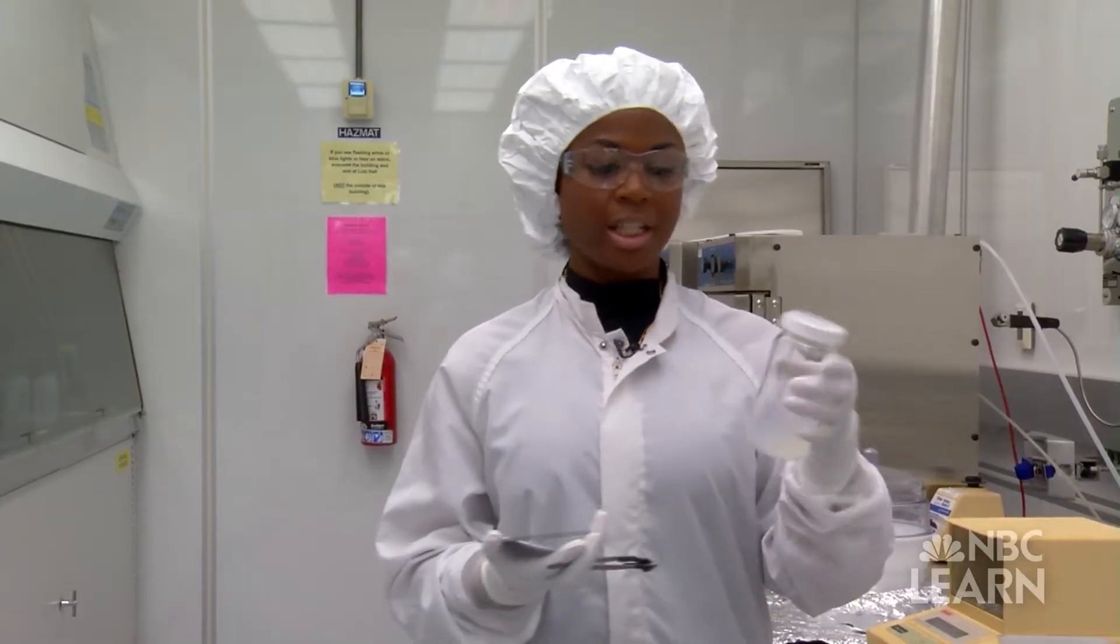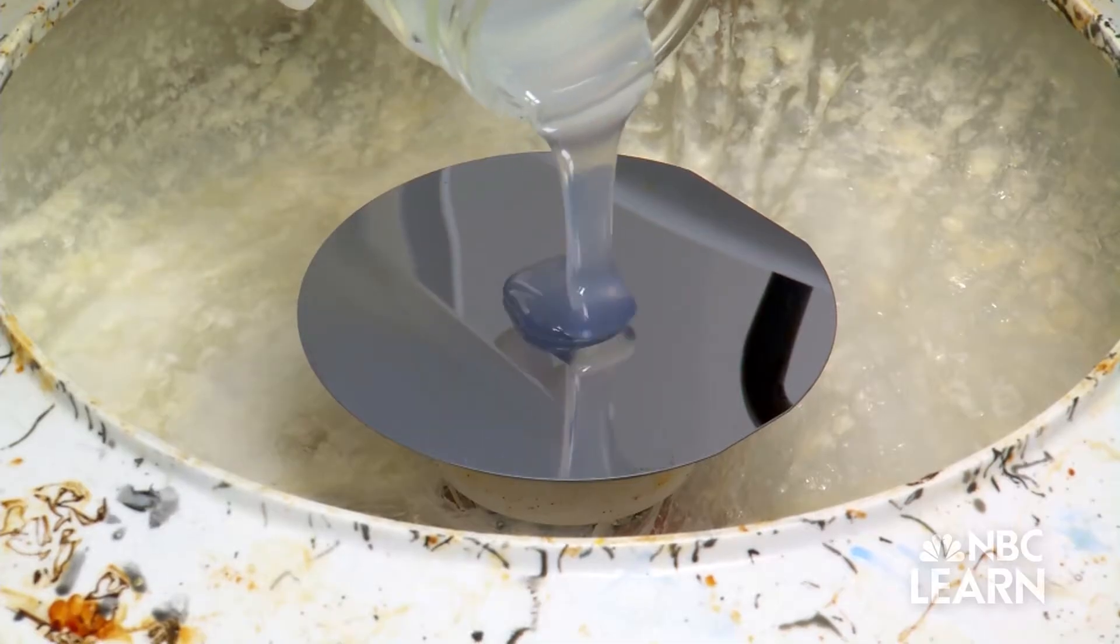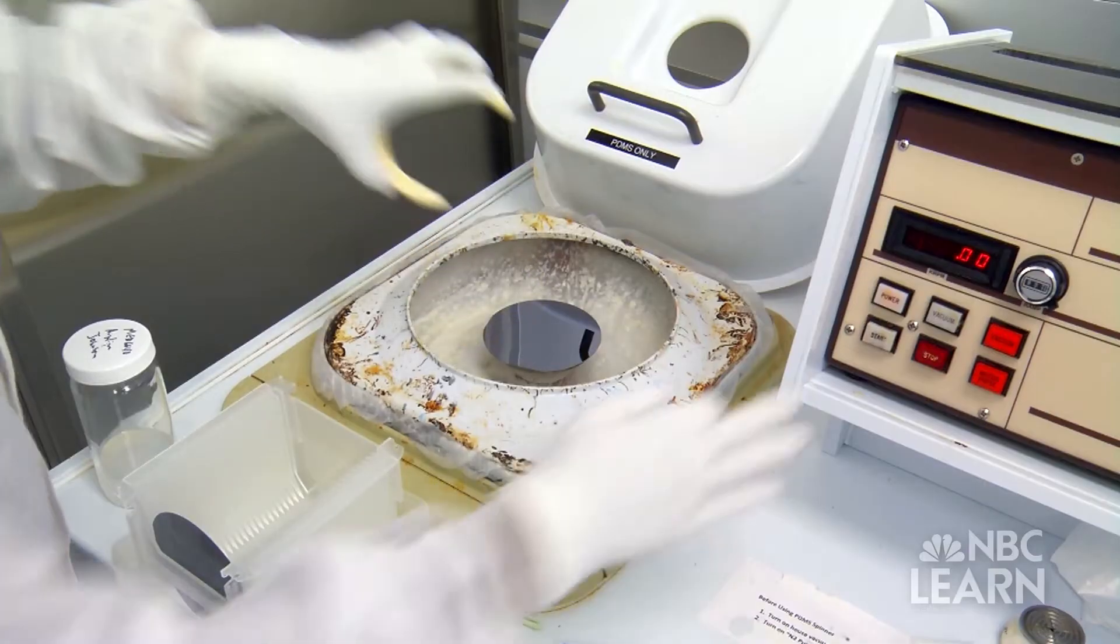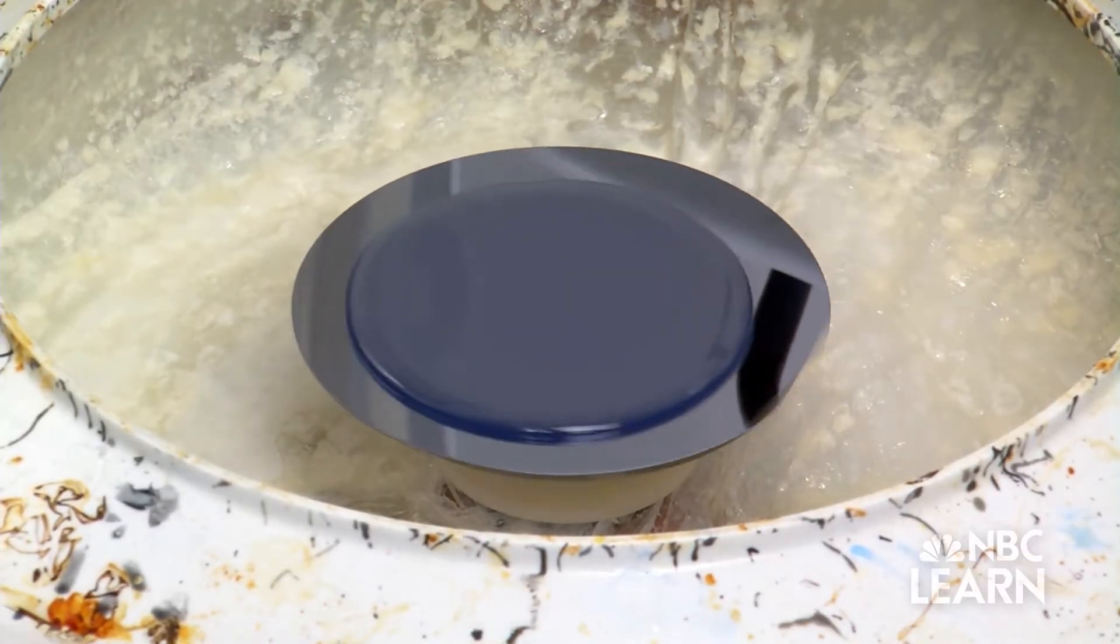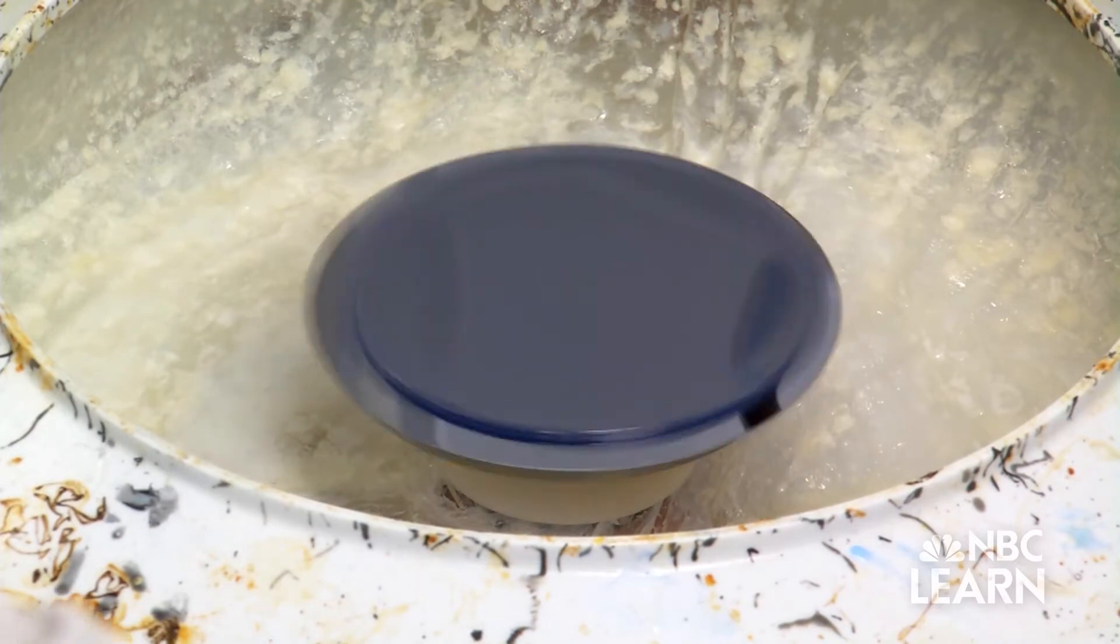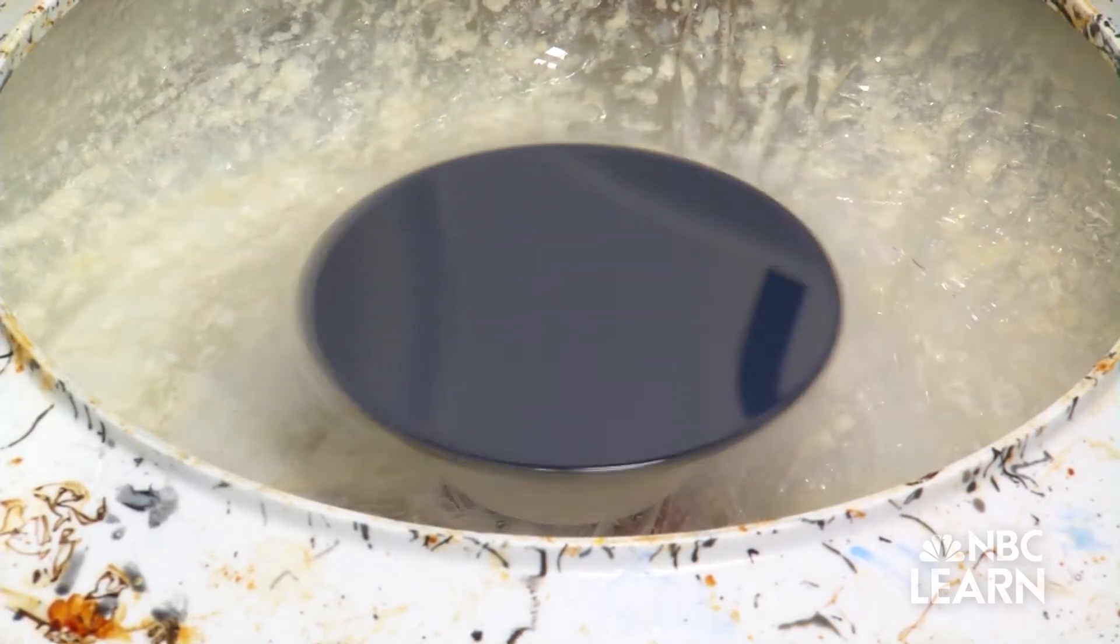I'm going to take this silicone, which is medical-grade silicone, and I'm going to spin it onto this silicon wafer. We just use it like a saucer, so we can build our devices on it and just take it from tool to tool.